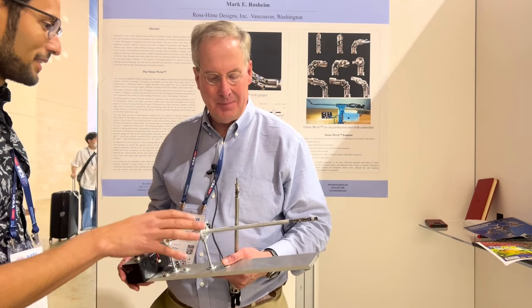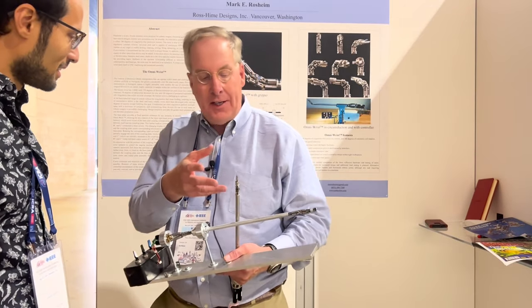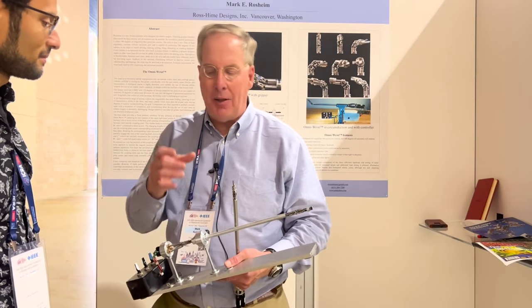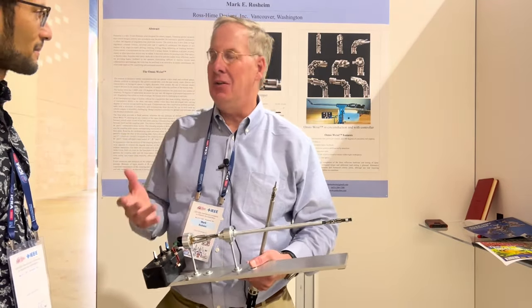So definitely a lot of applications in the medical surgical world. Exactly — it's the most glaring one. Are there any other applications? Well, you can scale this up and you can make humanoid joints — shoulders, spines. This has an unusual capability on the Z axis, so you can imagine a robot that can move its arms, telescope out, and do kind of unusual non-human motions.